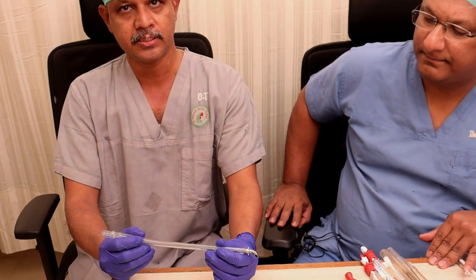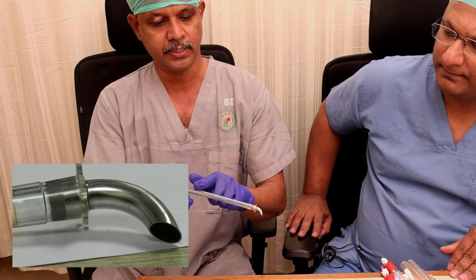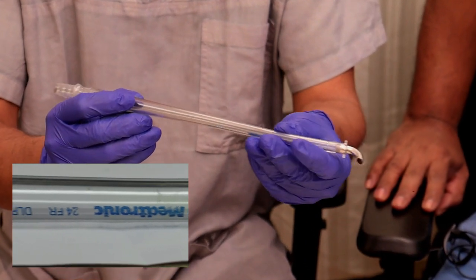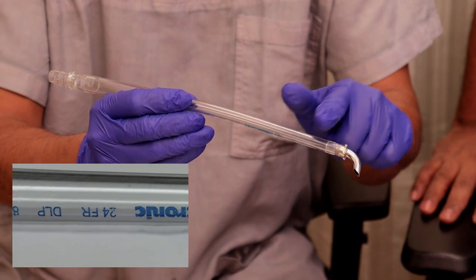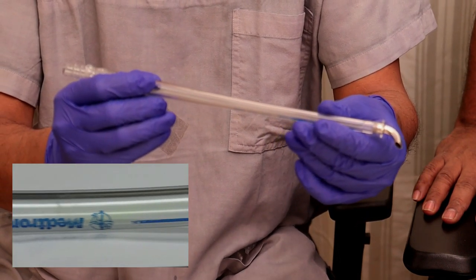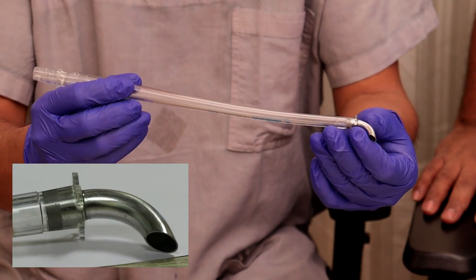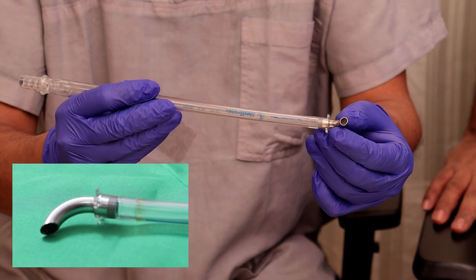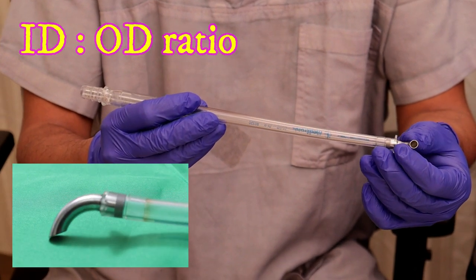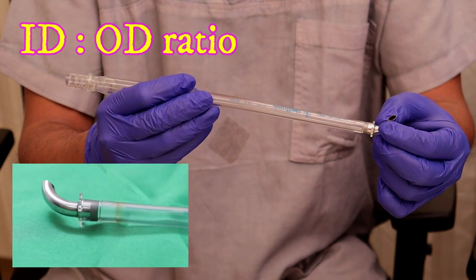The cannula should have a low pressure gradient. As you can see, it is very gradually tapered and narrowed only at the tip where it is inserted — it should not be narrowed throughout its course. This design reduces the pressure differential and allows maximum flow rates. The tip is metal, and there is something called the ID/OD ratio — internal diameter to outer diameter — which tells you how thin the tip wall is and how wide the lumen is.